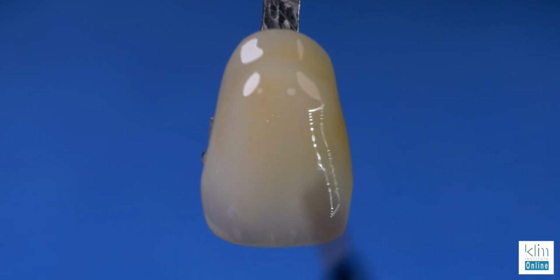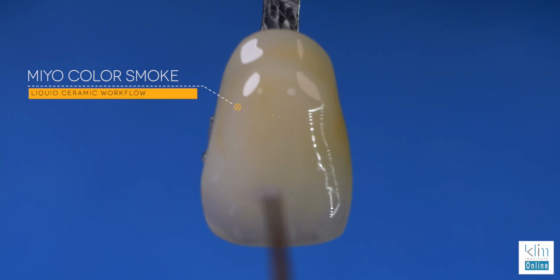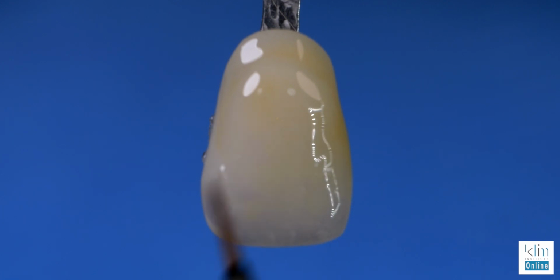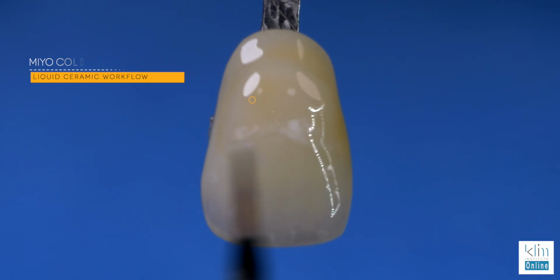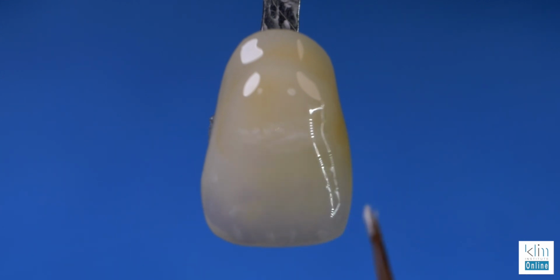Now in this case, we want to lower the value in the midsection of the tooth. That's with smoke. And you'll see this subtle floating, lowering that value to give more of a translucent effect. And then come back and finish up with the necessary enamel characteristics. This is more about technique. Watch the tip of the brush. Watch how we float. Decalcification options. It's about dabbing and letting that high value dissipate to make it look really natural.